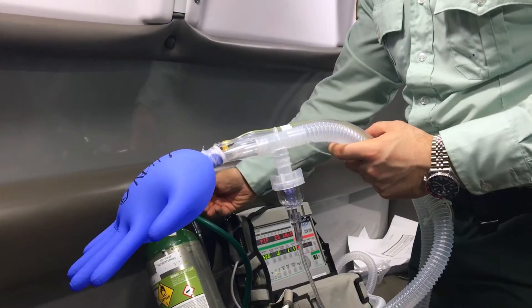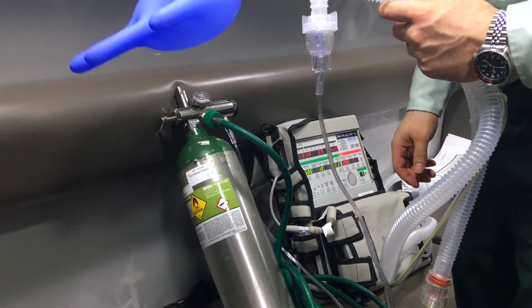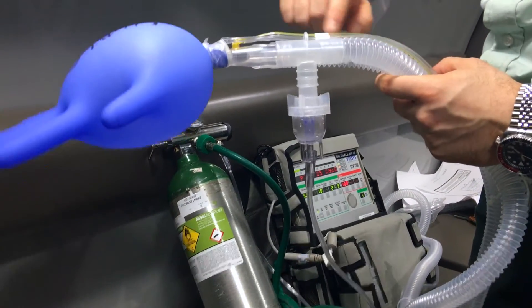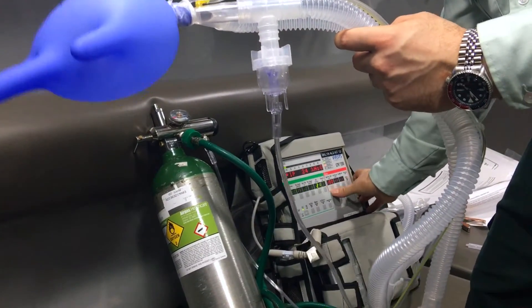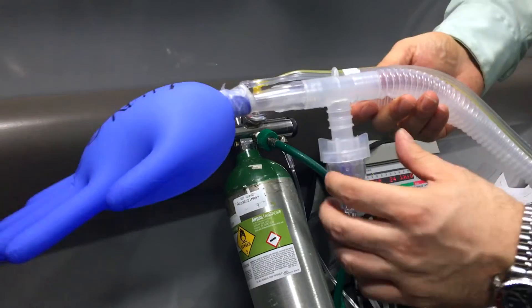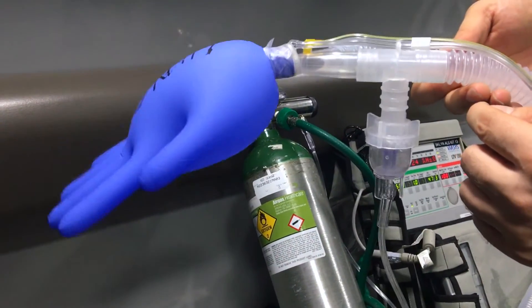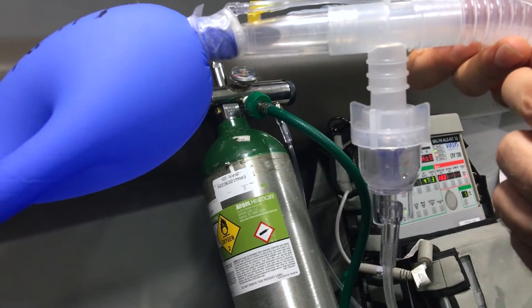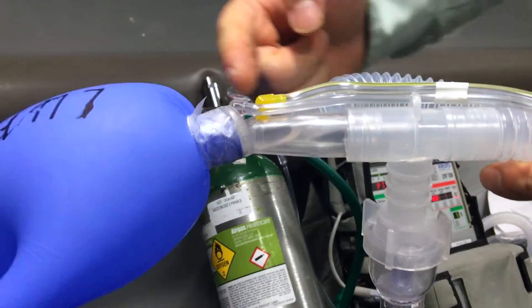It's going to simply turn this to six liters. So every time a breath is delivered, the patient is getting the medications. And if you look here, you can see with every breath the medication is flowing. The patient is also able to exhale through the expiratory limb.